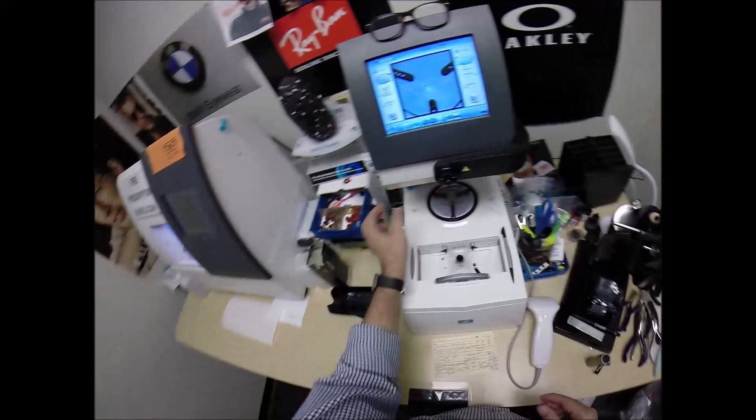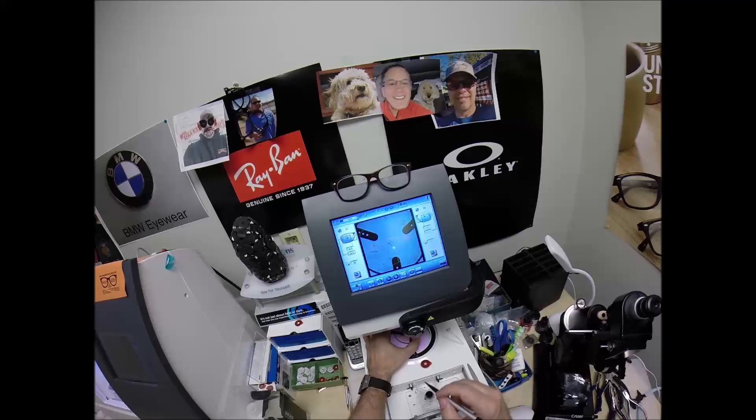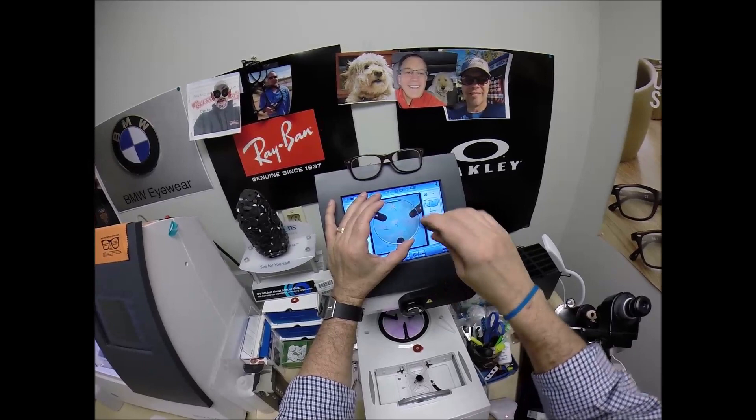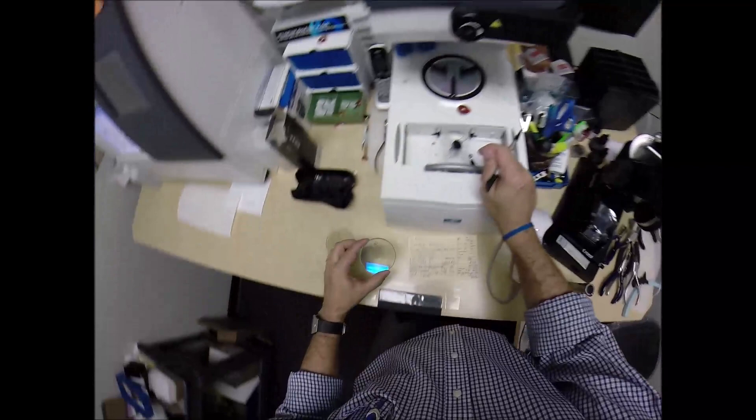I've got your lenses prepped. Place that onto the platform. Grab two blocks. It already has the double-sided adhesive stickers attached. Pull the paper away to make the other side sticky. Line up the magnet. And progressives, the Essilor Ideal Advanced, which is a digital premium progressive lens, free-form progressive lens, has a four drop, meaning it drops four millimeters down to the 180 meridian. So that dot is where your pupil will be is four millimeters higher than these other two dots, which tells me that it's oriented and they're just right.